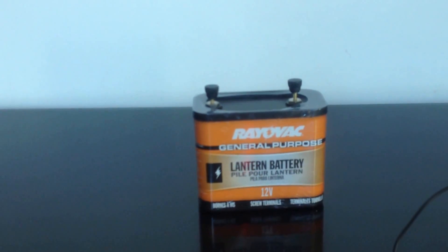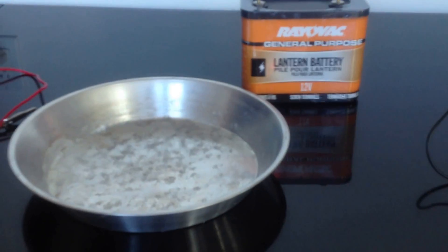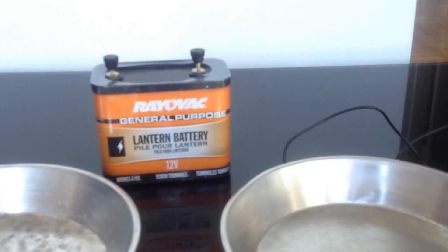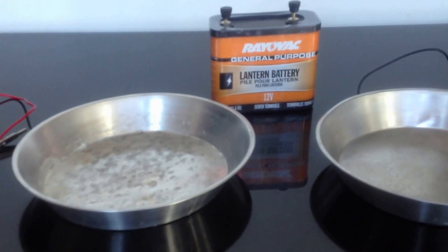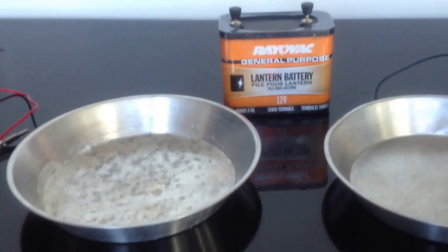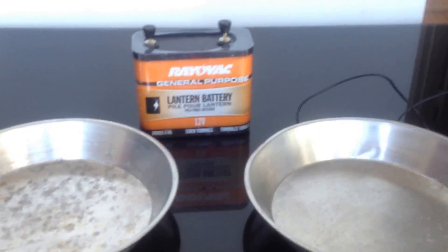And finally, you need some electrodes to connect the charge to where you can dip your hands. I use simple aluminum plates — these are the ones I use for my hands. If you need to use iontophoresis on your legs or feet, you'll probably want a bigger one. Those bigger ones are also very easily available across home stores, furnishing stores, and kitchen stores.